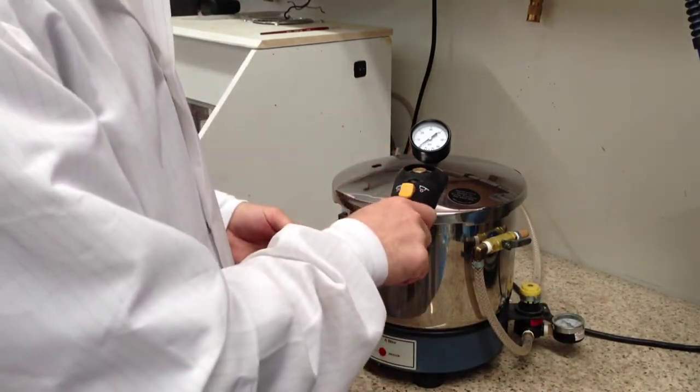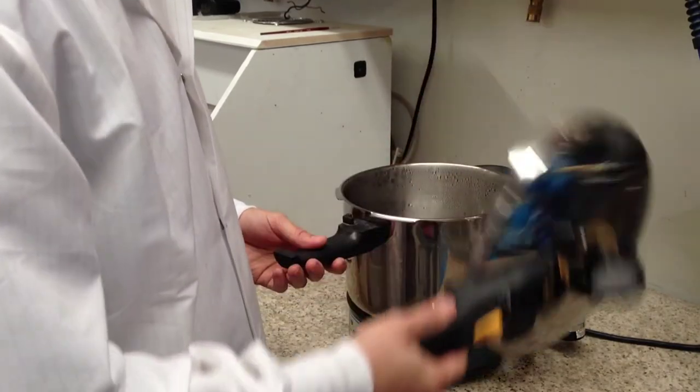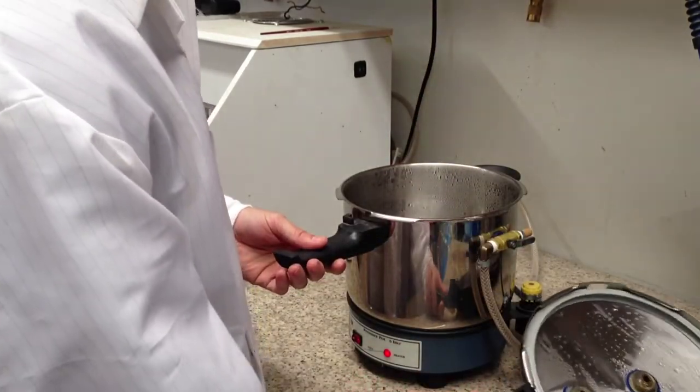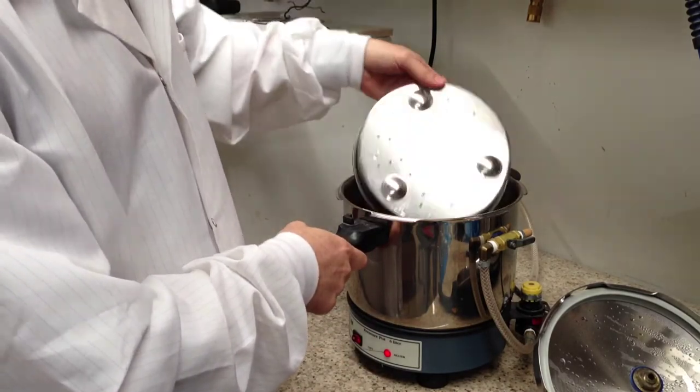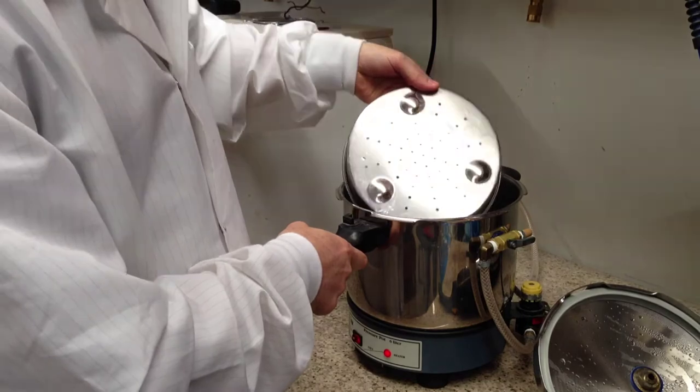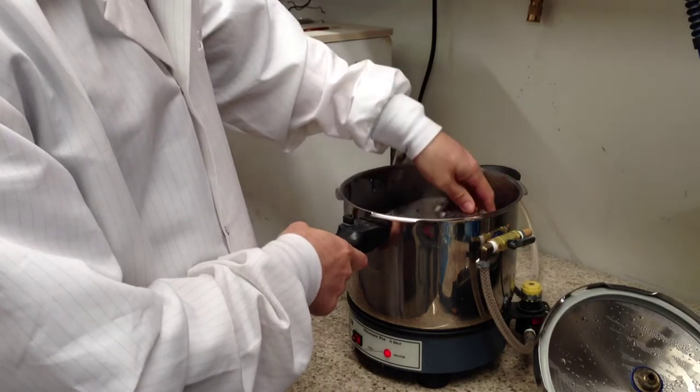It is about six liters, and with this you will cure your acrylic. Inside you have a platform where your model will rest on top after you have poured your acrylic and are ready to cure it.